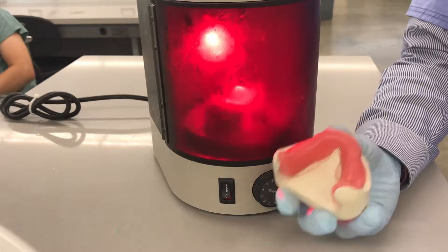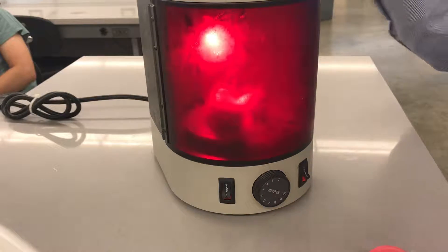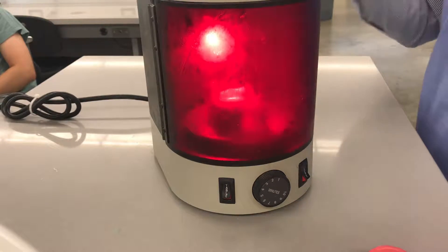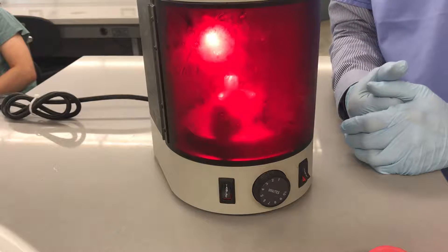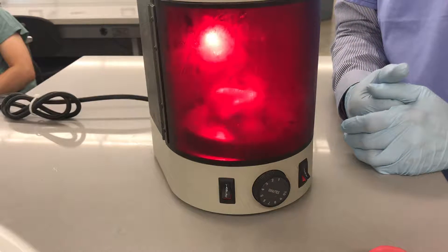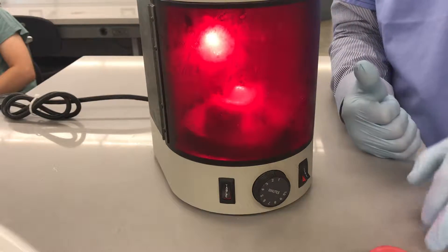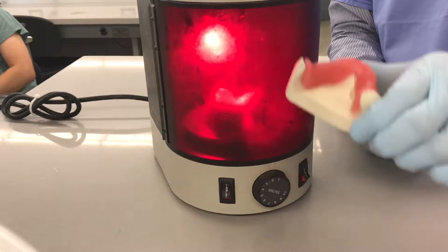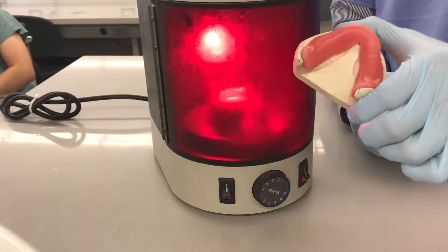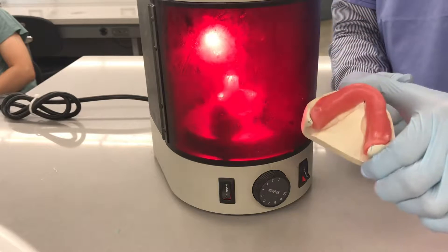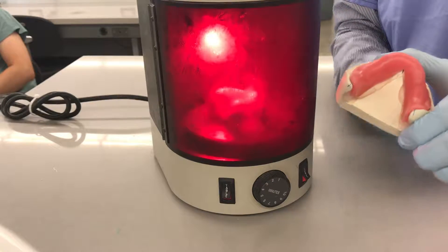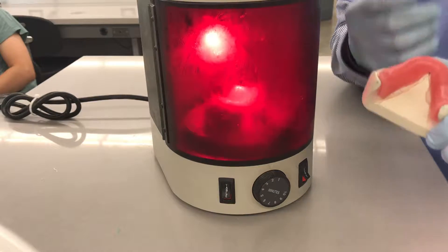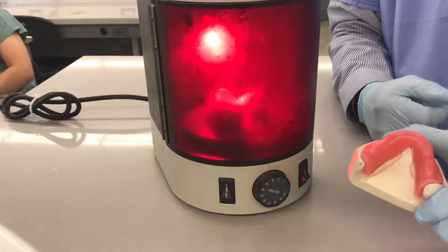Try not to go longer than three minutes because it will create quite a bit of heat here, and you could end up distorting the base plate material or the tray material. And I said base plate because it's the same material we're going to be using for the next exercise, which is the fabrication of bite blocks. And that's the main material we're going to be using for the actual base of the bite block.